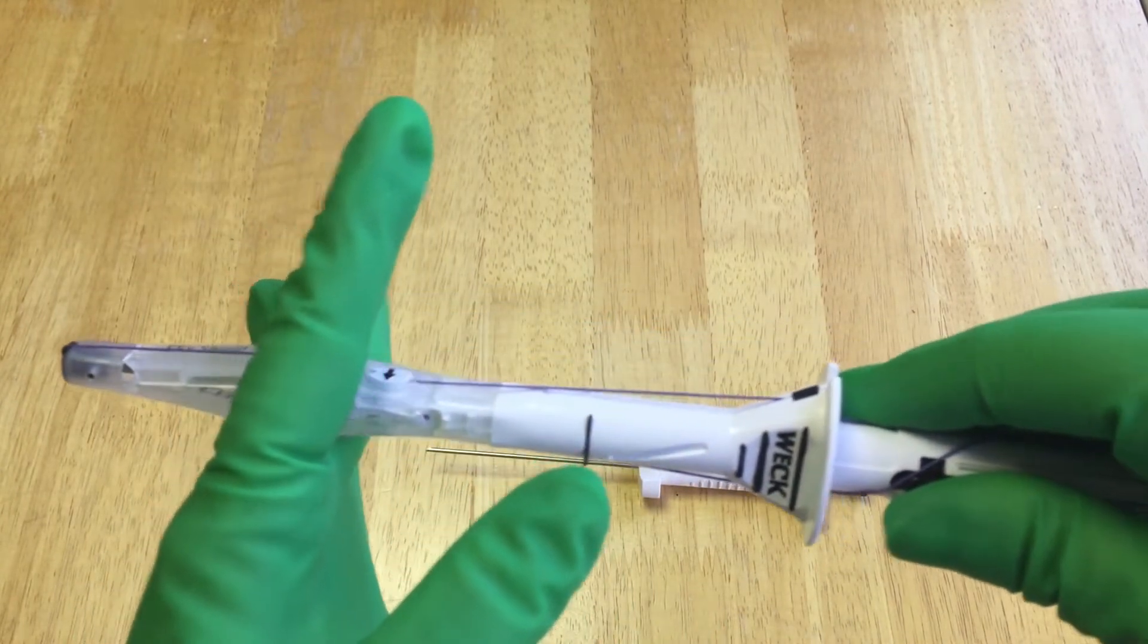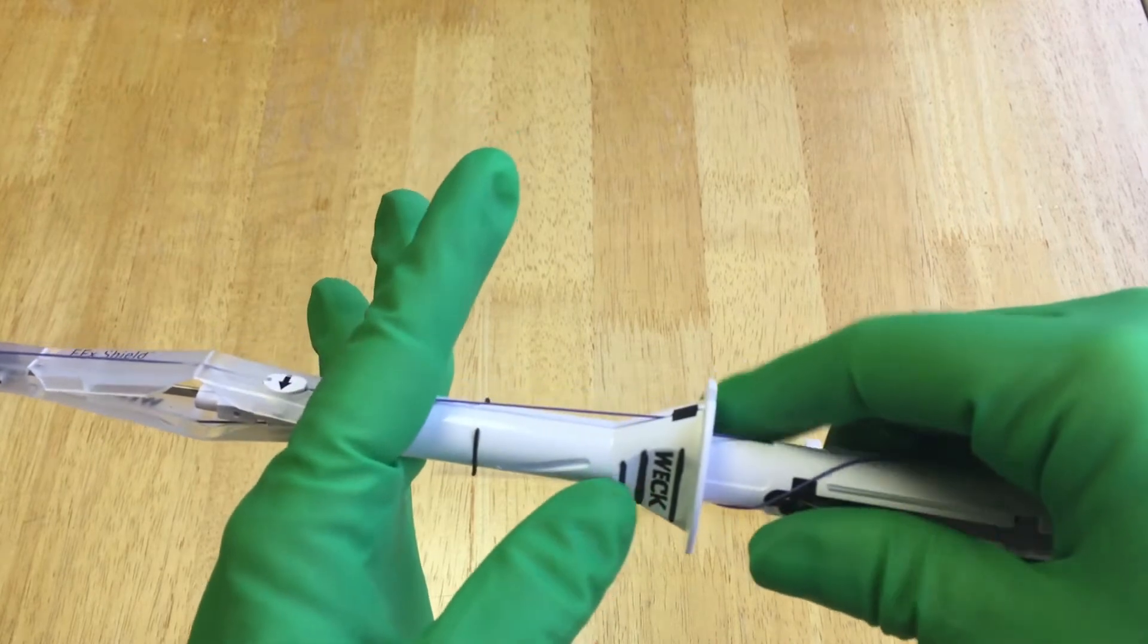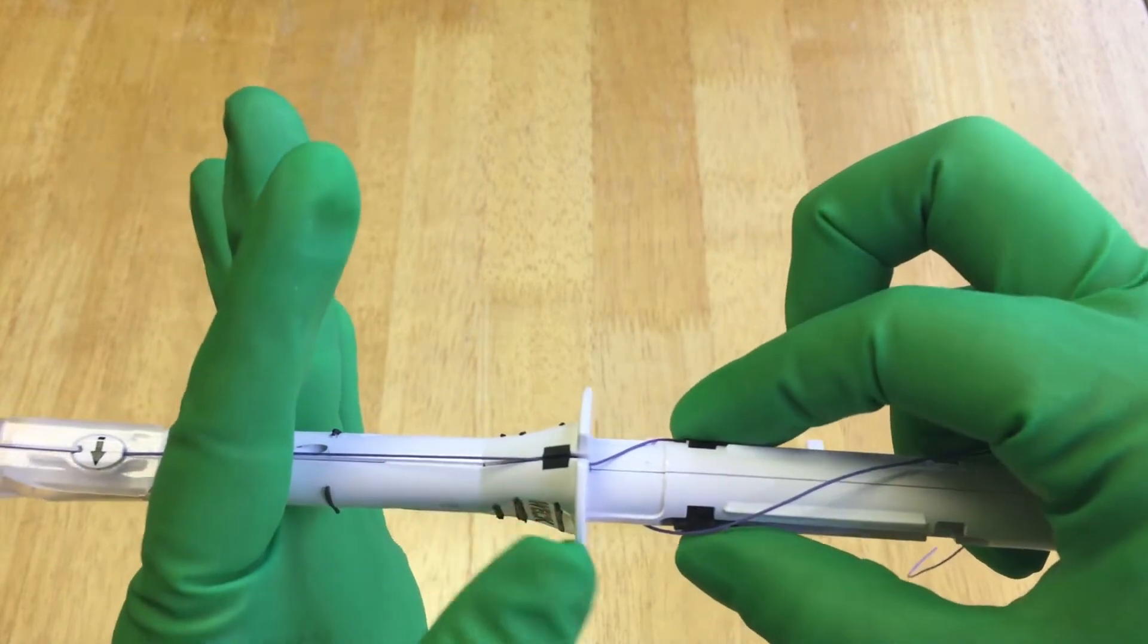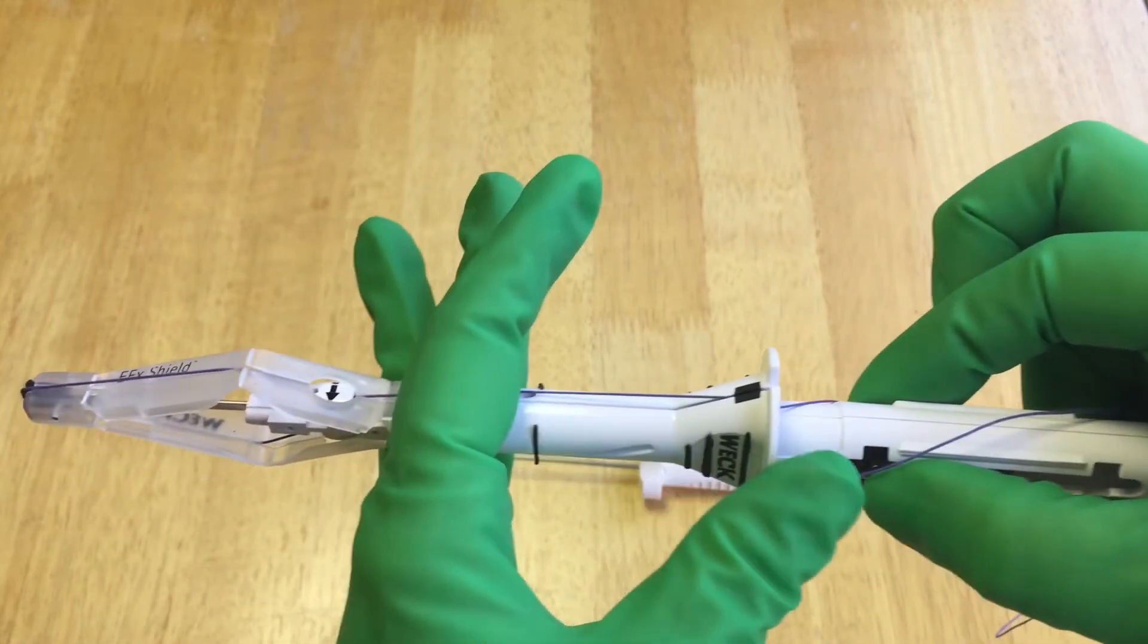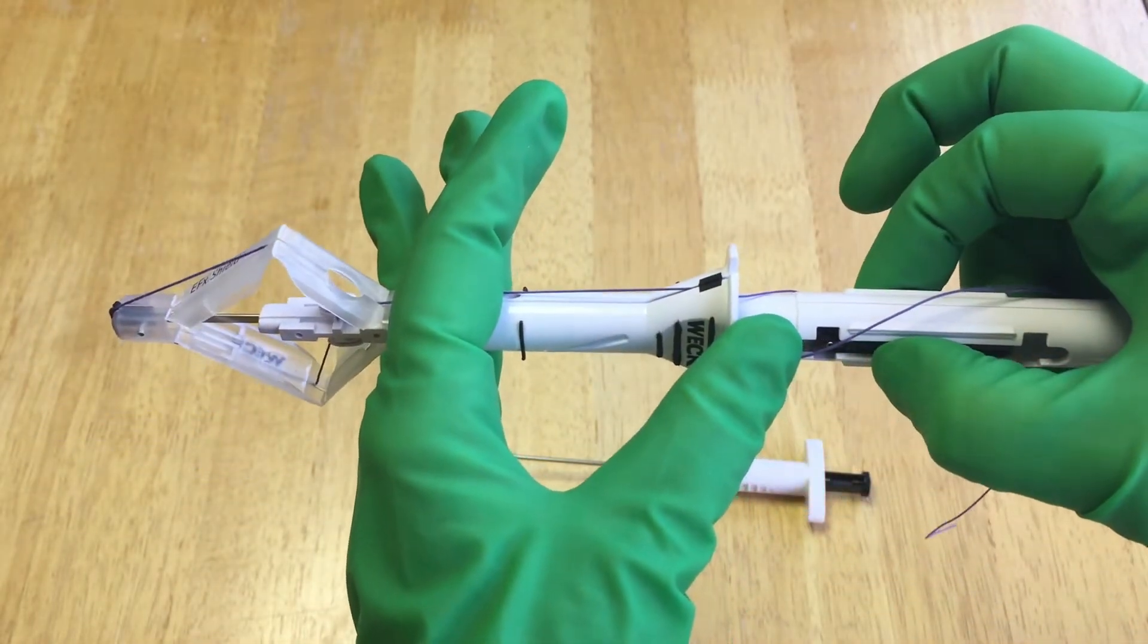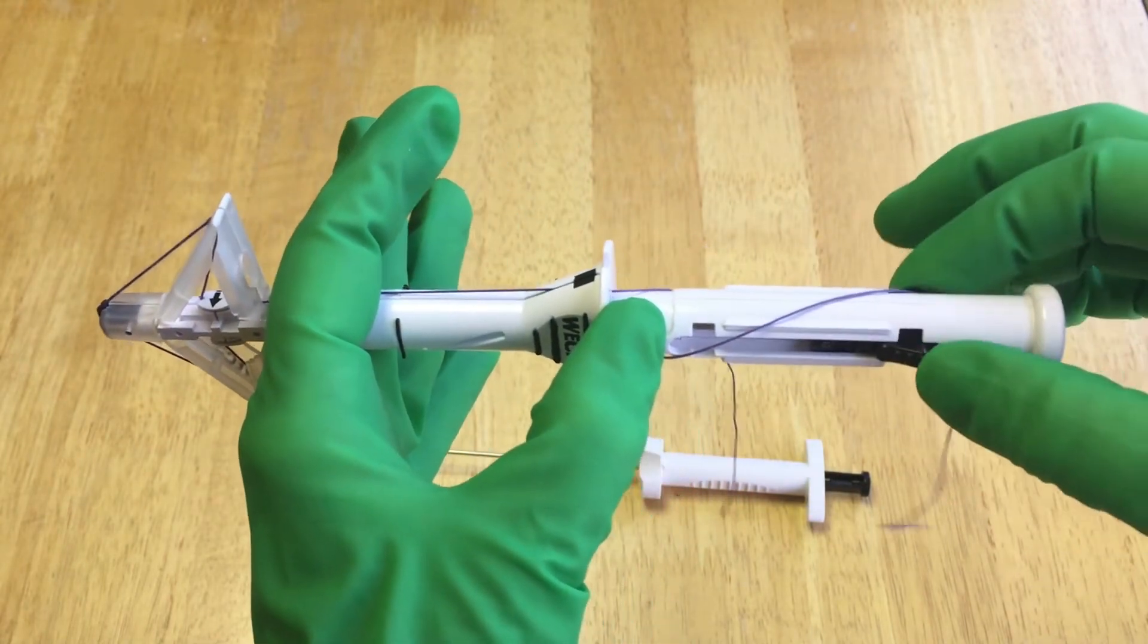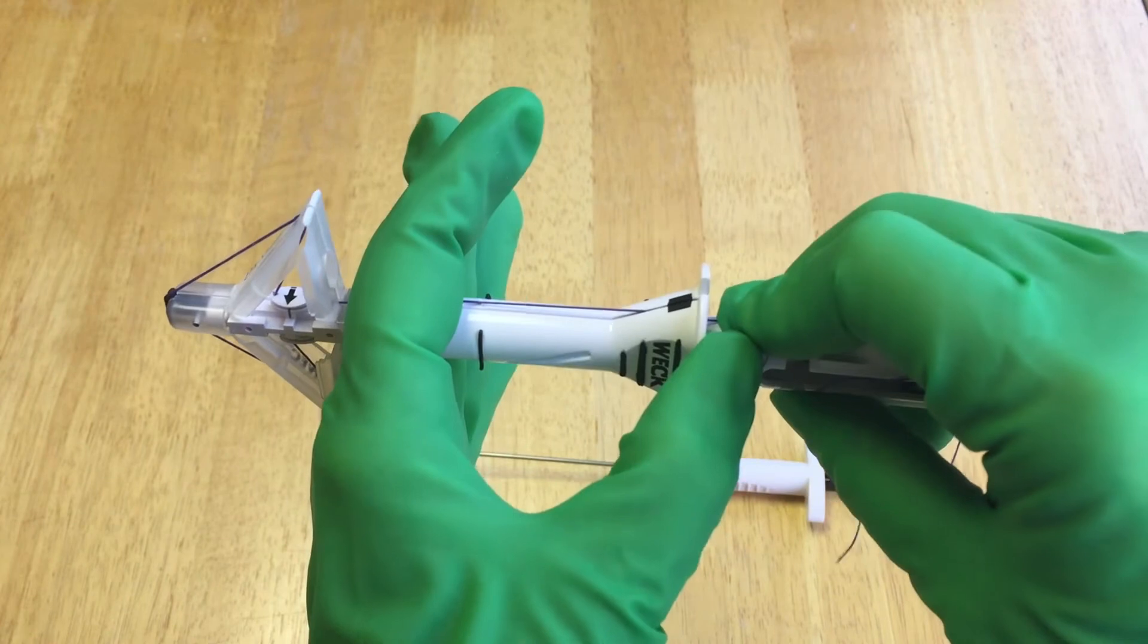See how nice and long it is. And then you're going to take these pieces here, push a button on both sides and pull. I don't know, see what's happening on the inside. Okay, now it's clicked in here so it is deployed and ready to go.